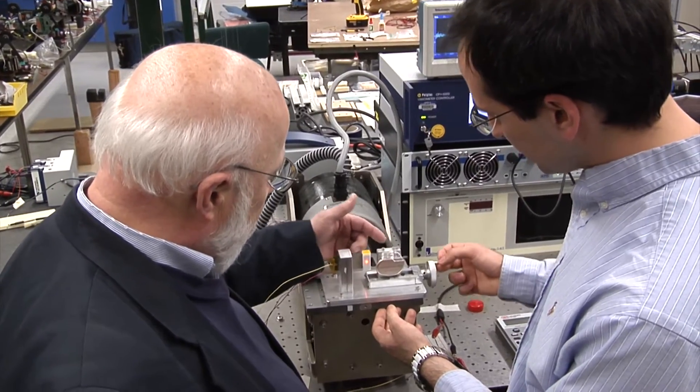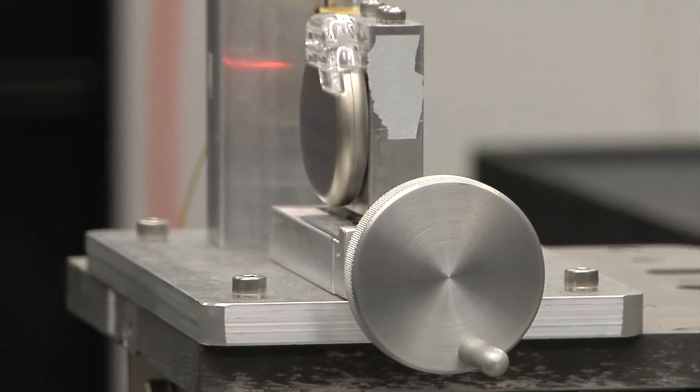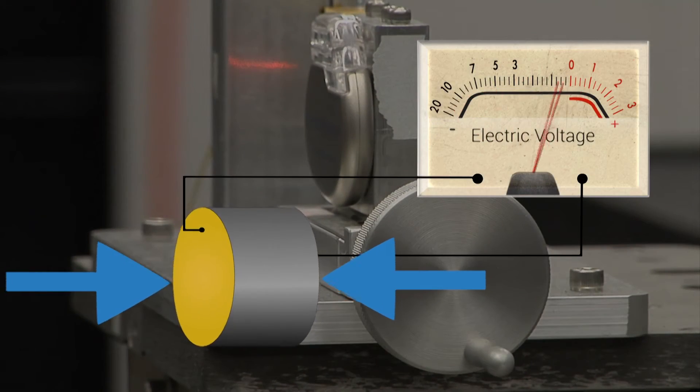Researchers reproduce heart vibrations using a tool that simulates a heartbeat. A piezoelectric device is used in place of a battery, absorbing the vibrations and turning that energy into electricity.